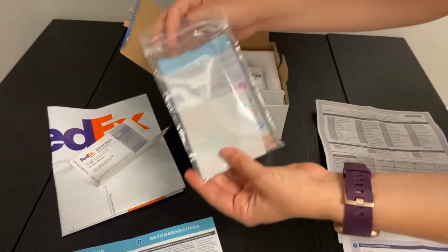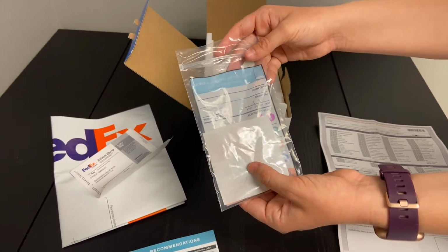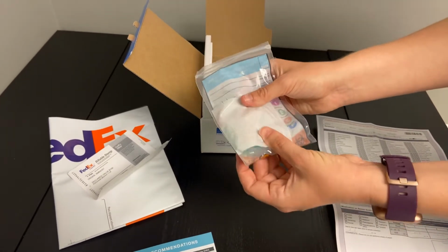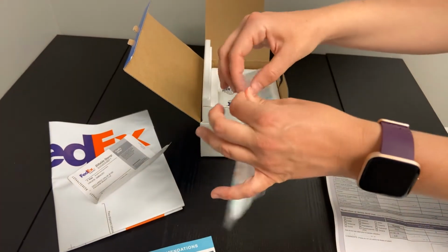In this bag, you will notice that there is a little piece of paper towel. This is to collect any sort of condensation that might appear and definitely collect any sort of saliva that might pop out, which is why it's so important that you make sure this is nice and capped tight before you put those little tubes into this baggie here.